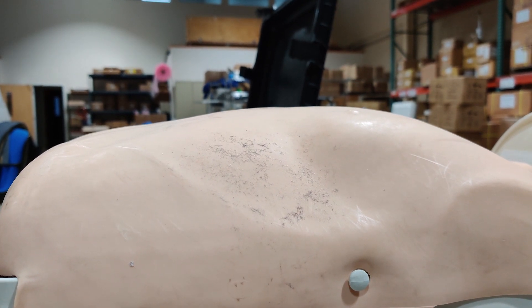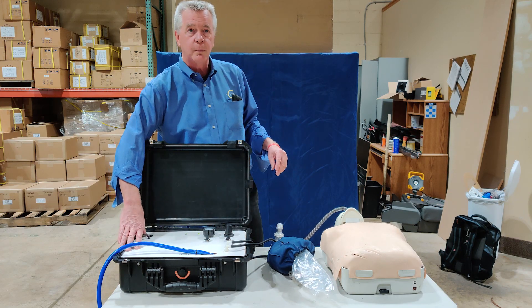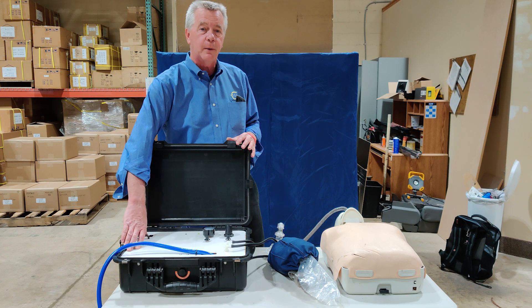That can be set anywhere from 6 up to about 15. We have a pressure regulator here. This is also battery-backed — it will last for about seven hours without power.